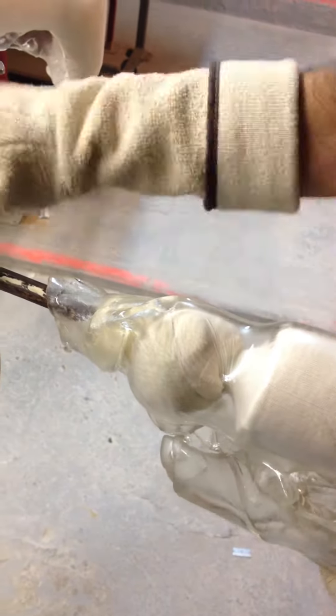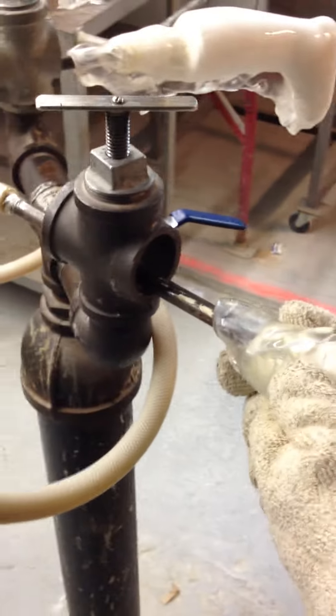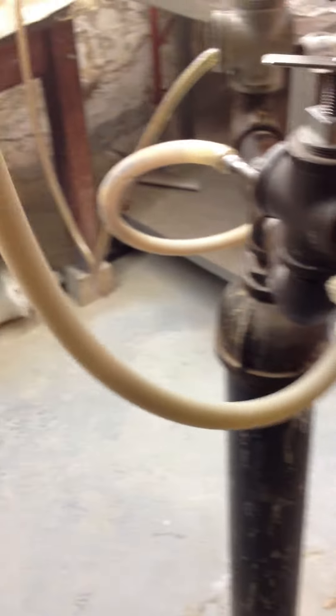It could be any one of many issues. Could be a clogged vacuum line. Could be a wrinkle in the plastic — right there — which may lead into the trim lines of the brace.